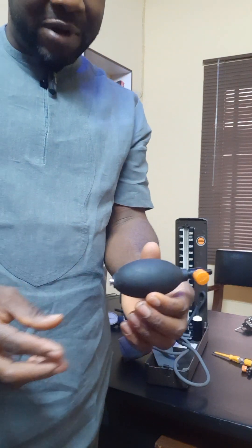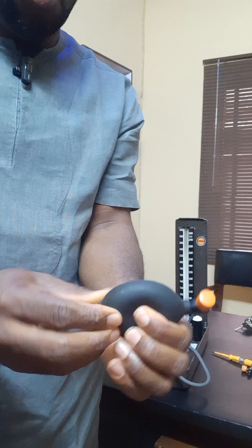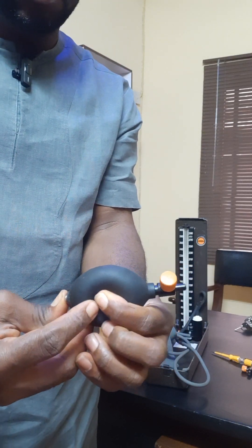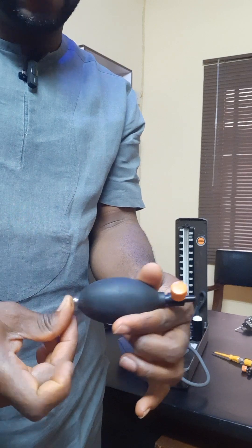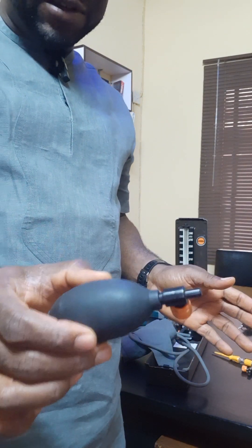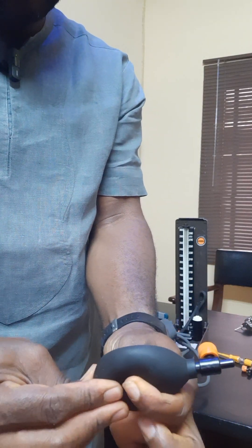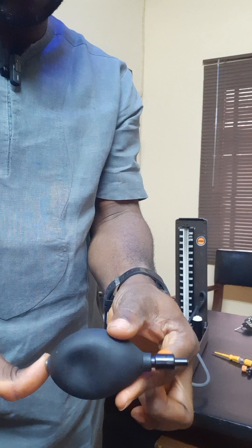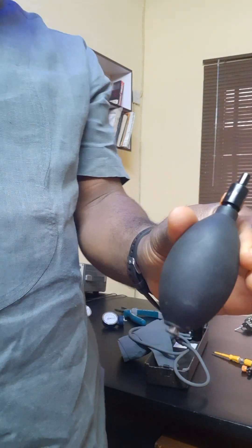I will compress right now and hold the valve. You see? It confirms that this is not okay. Let's do it again so that you see. This has confirmed that this is not okay.